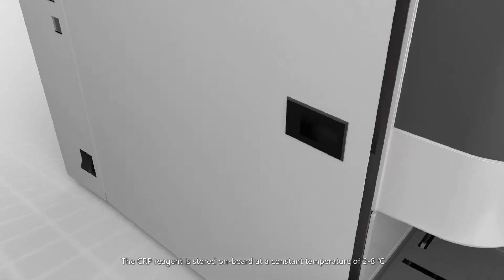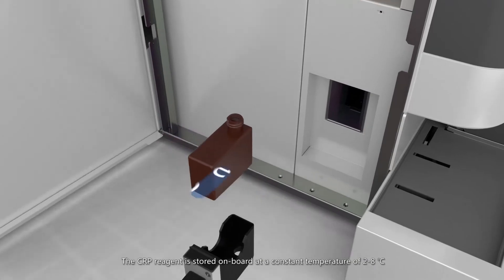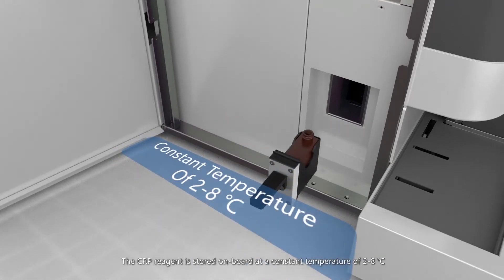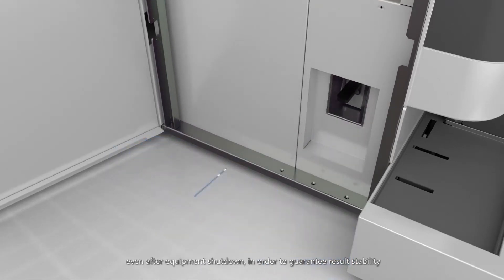The CRP reagent is stored on board at a constant temperature of 2 to 8 degrees Celsius, even after equipment shutdown, in order to guarantee result stability.